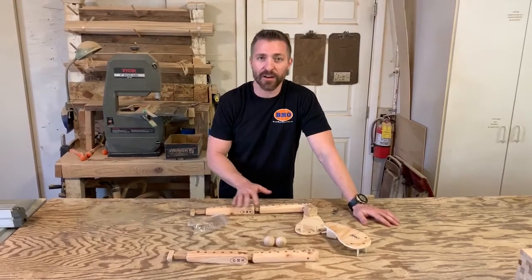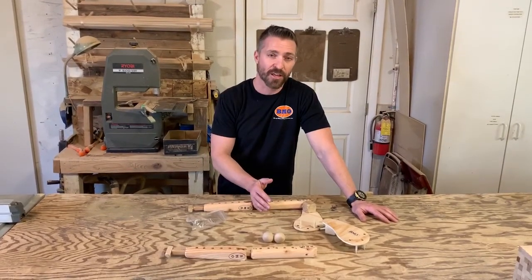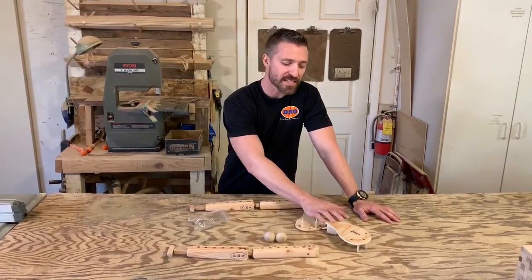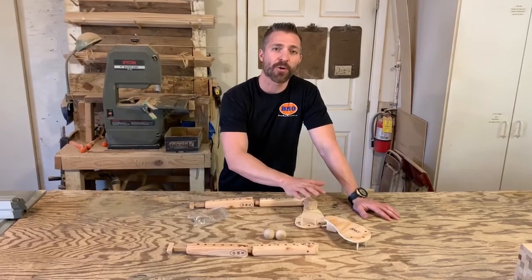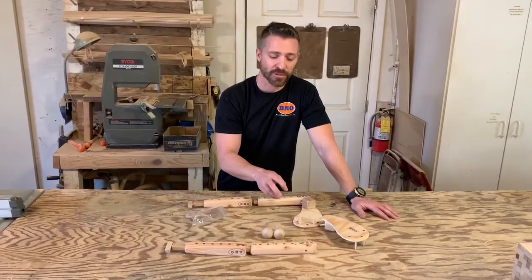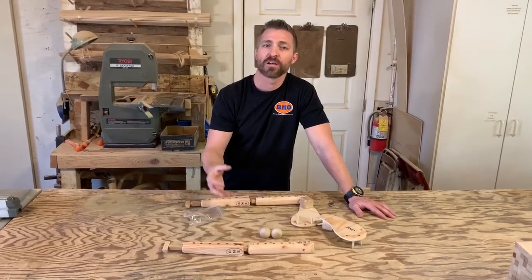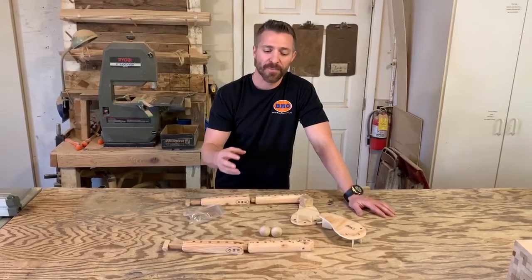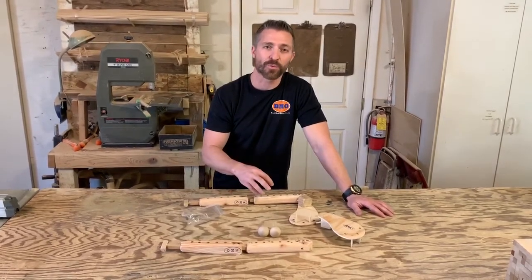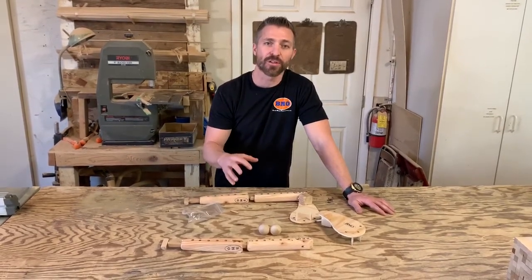If you need some refreshers on that, go to our other video for the upper extremity or the proximal upper extremity — you can find those in the links below. Also remember custom work: these and many of our other products came about because of custom work needed by specific OPOs. If you have a specific problem without a solution, call us, talk to us, email us. Our in-house design team is excellent at working through the process — we can work with your OPO directly and get you the custom needs that you have.